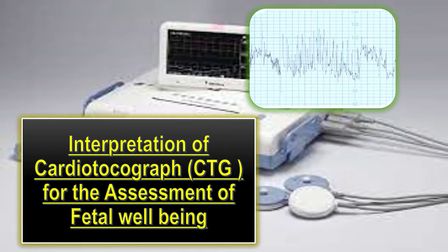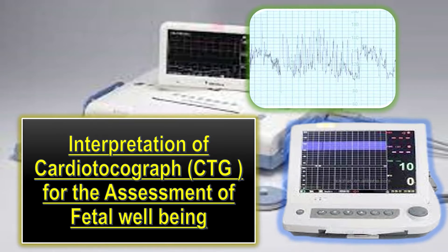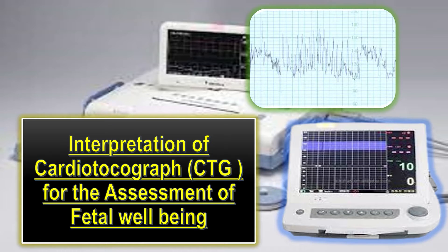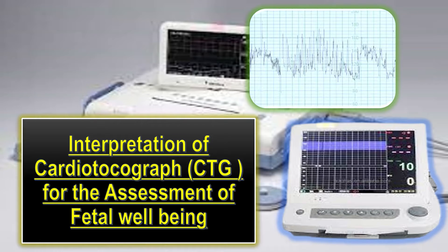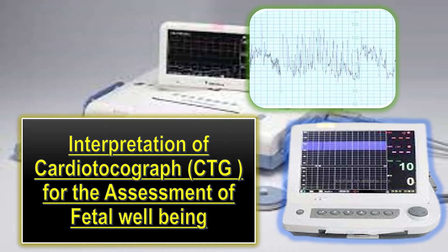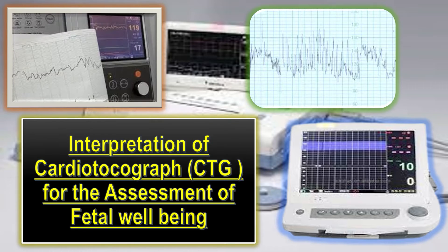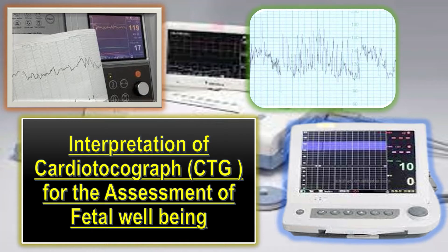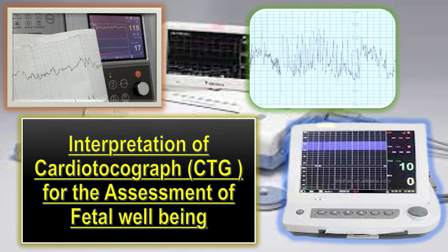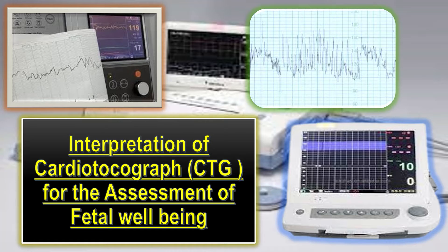Fetal heart rate monitoring can also help us in prevention of treatments that are not needed. CTG is widely used in pregnancy as a method of assessment of fetal well-being, predominantly in pregnancies with increased risk of complications.